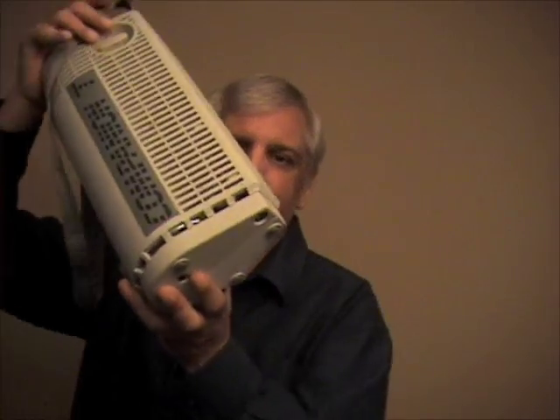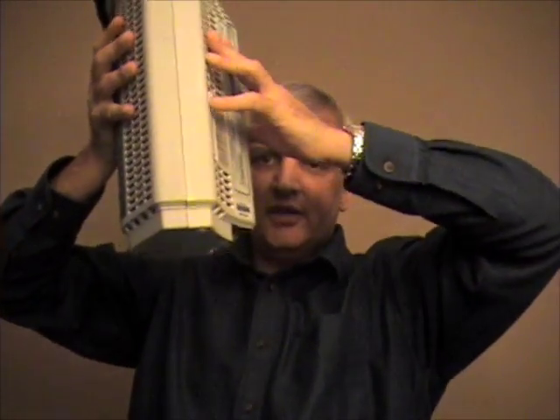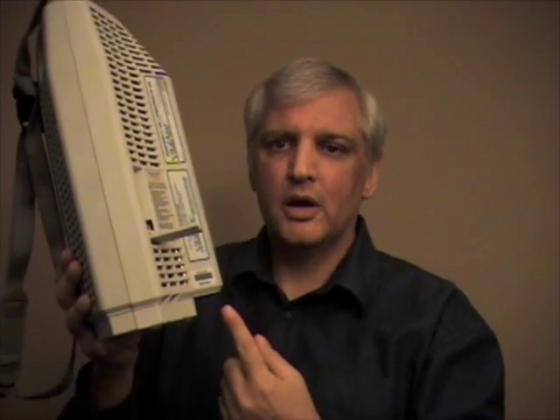This might be the last tip. This unit is one of the ones that fills on the bottom. When you fill it, you sit it on top of the refill unit and then you pull this switch here, and that allows the oxygen — compressed oxygen, liquefied oxygen — to be pushed up into the unit.